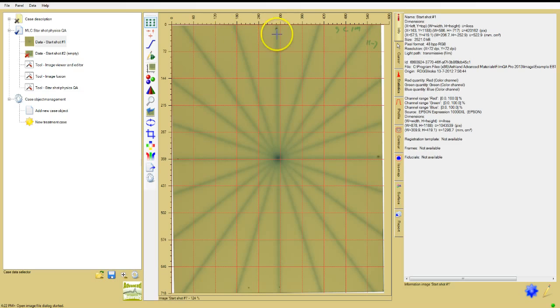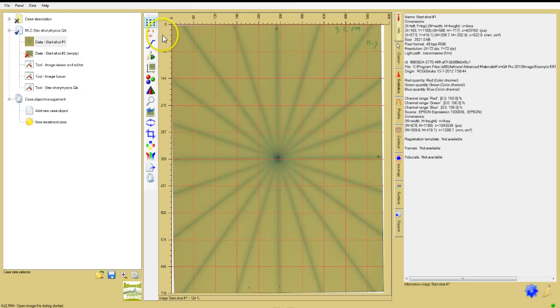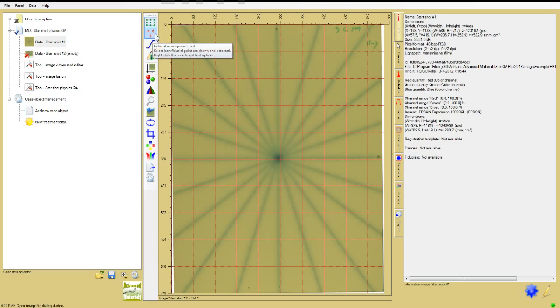In this instance, pen marks were described close to the center of each edge of the film. While recognition of these marks could be automated, human pattern recognition is superior when a film has other identification marks as well as the fiducials, so it's quicker and more reliable for you to highlight the fiducial marks in the software before fitting them.